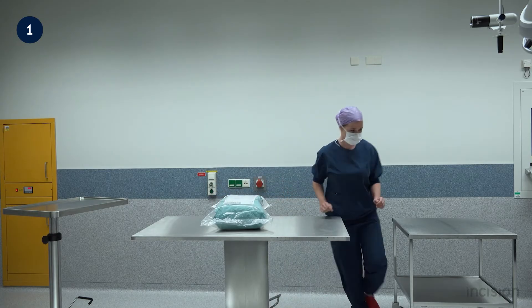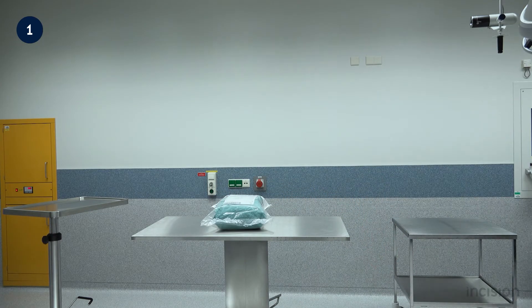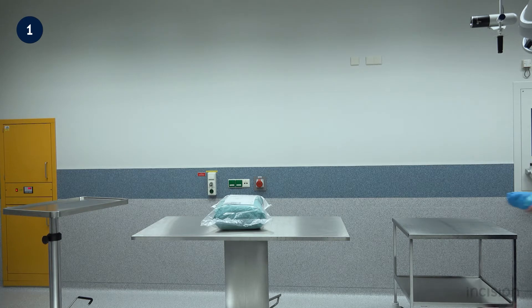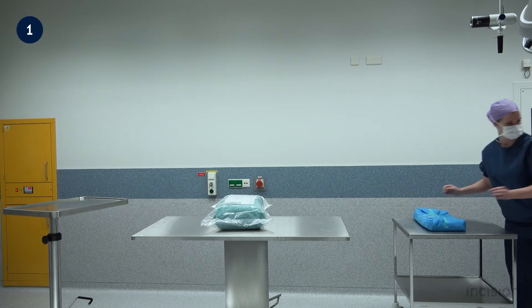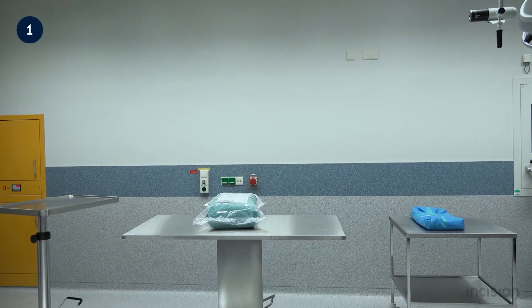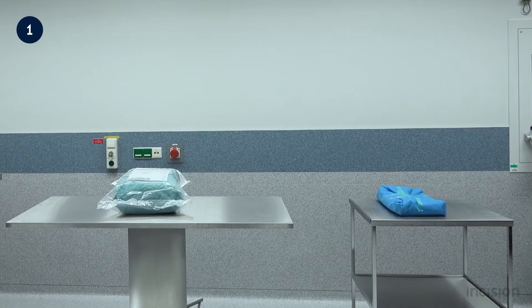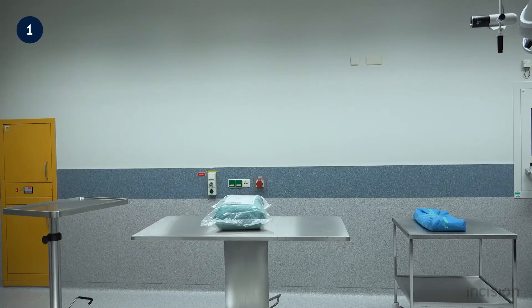In this film, a lot of the disposables required are already available within the procedure pack. This may not always be the case. Preparation is key, and all instruments and implements that may be required during the procedure should be available in the operating room at the start of the procedure.